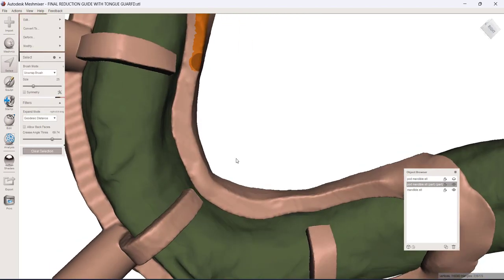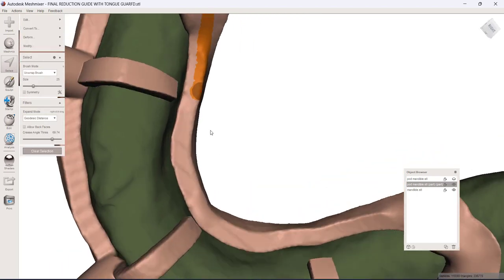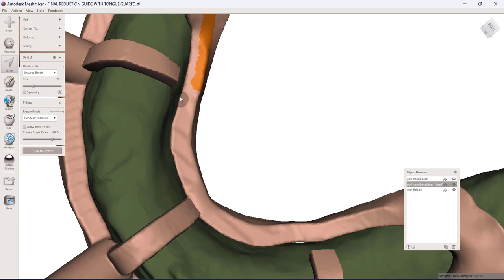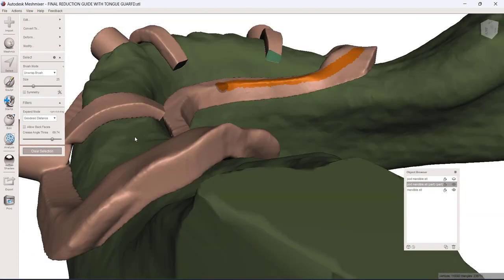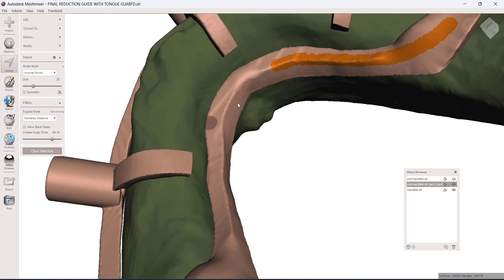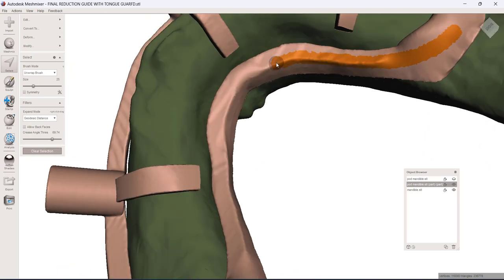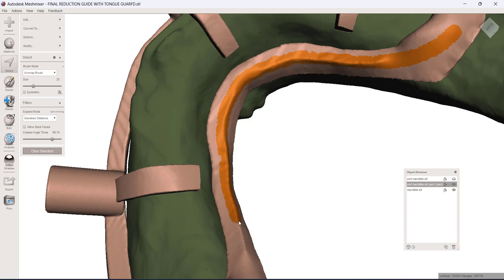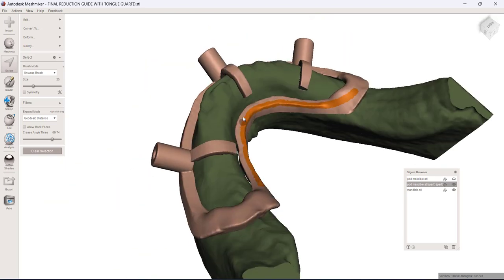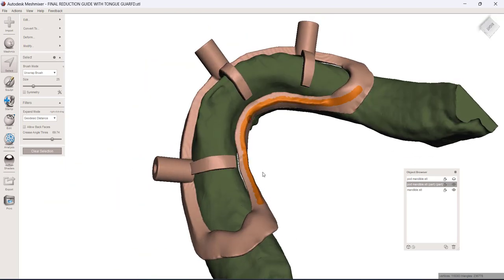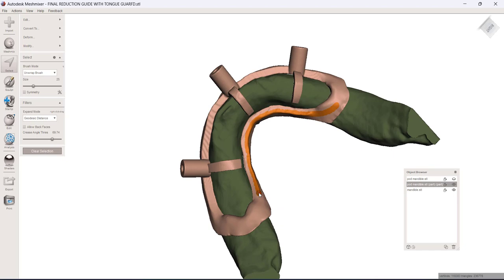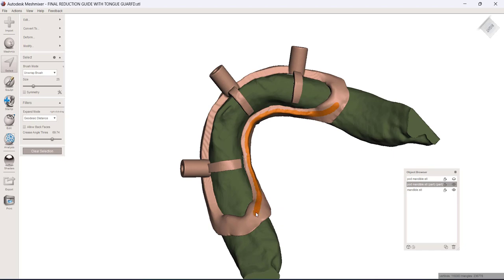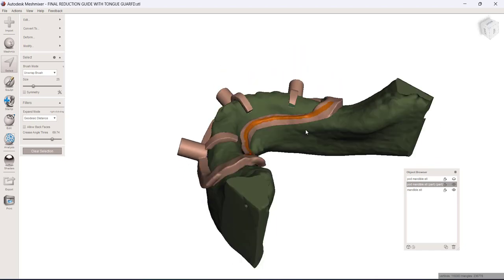And so I don't want to go all the way to this ledge right here because that ledge is my visual indicator of 'Hey, here's where the reduction stops.' And I don't want to go excessively deep on my lingual reduction for such a case. And so I'm leaving a lip of that undisturbed, but I'm basically going around this and selecting kind of the inside edge, the lingual edge there. And then we can just taper this up maybe right there.